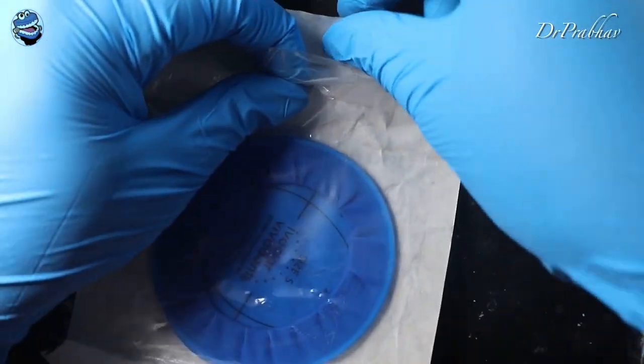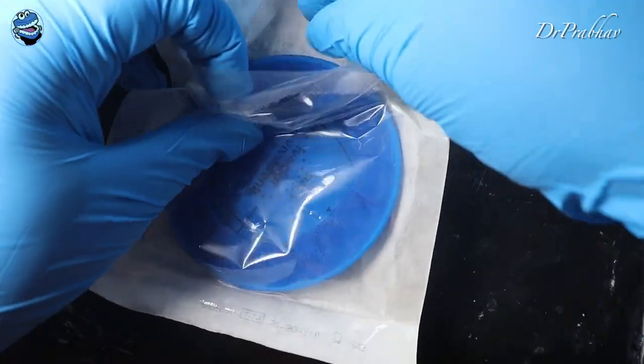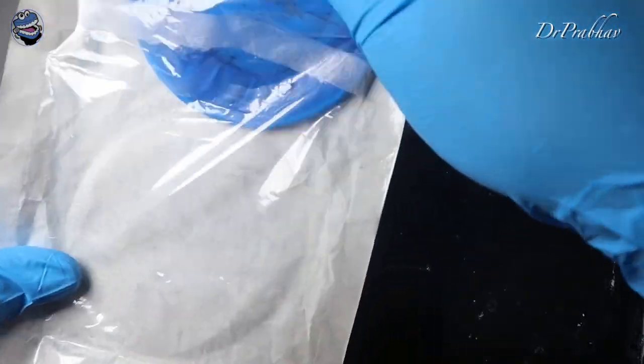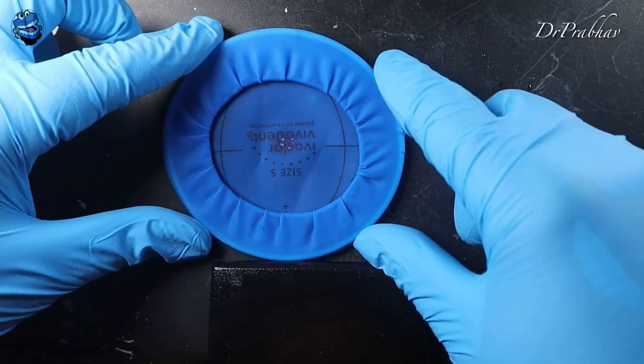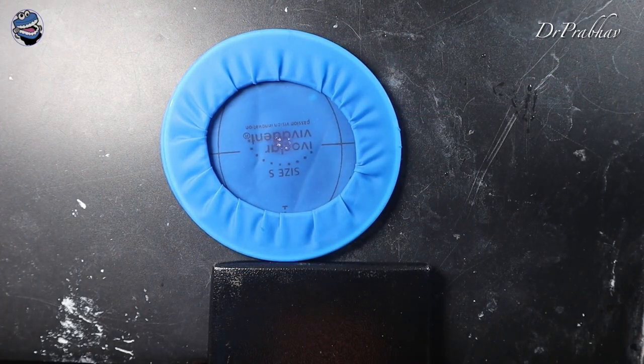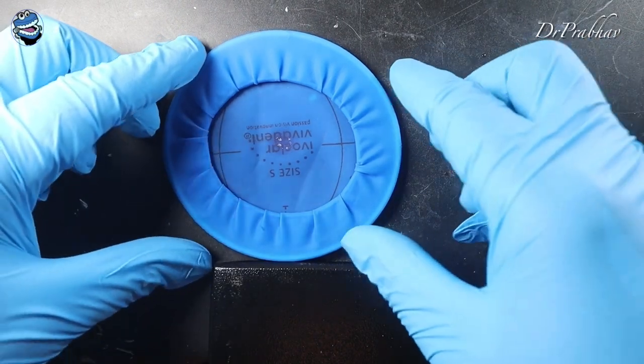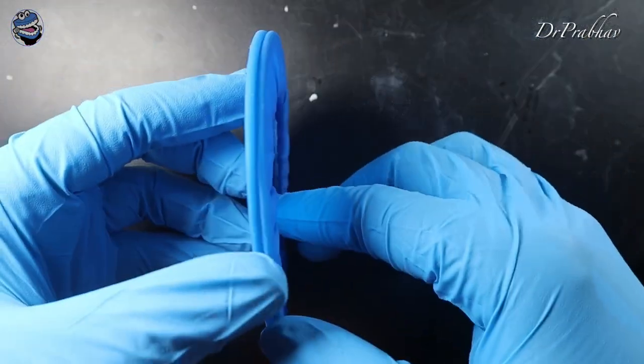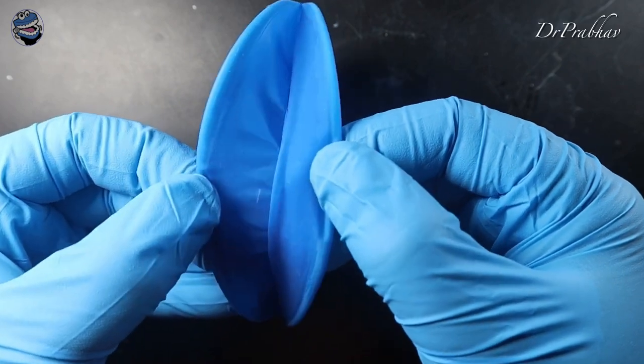I purchased the small size. I thought that this would fit in our dummy patient, although we have the size medium and large in this OptraDam. So what we did was we checked this out and it says that it is similar to conventional rubber dam.